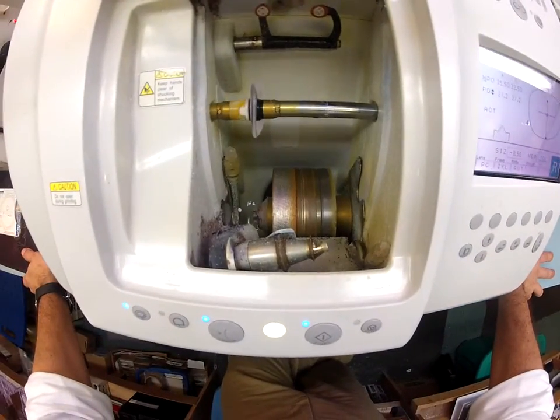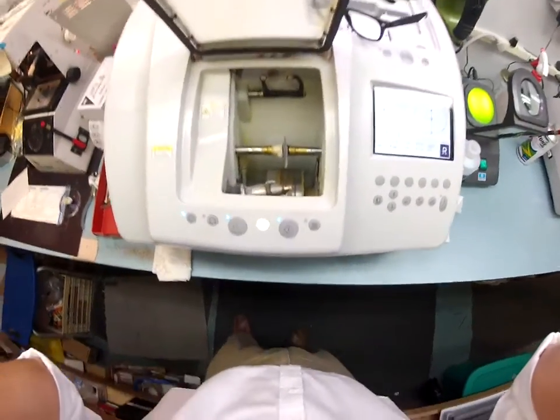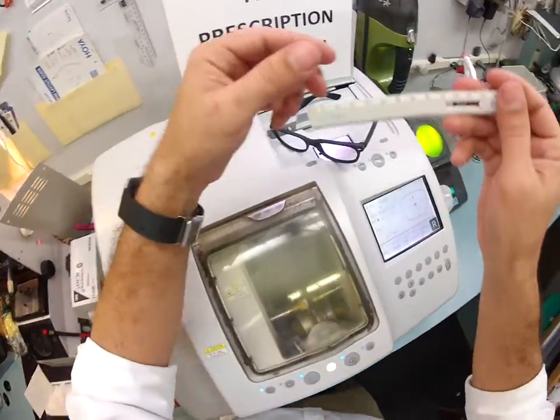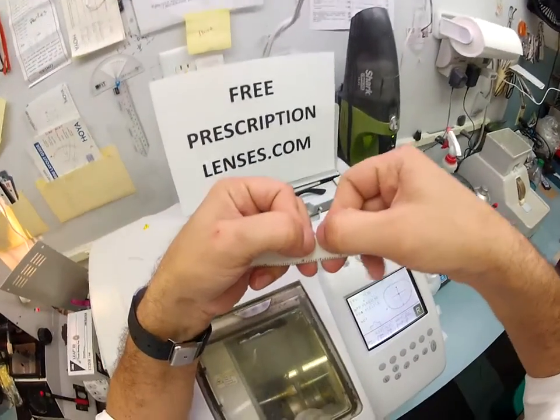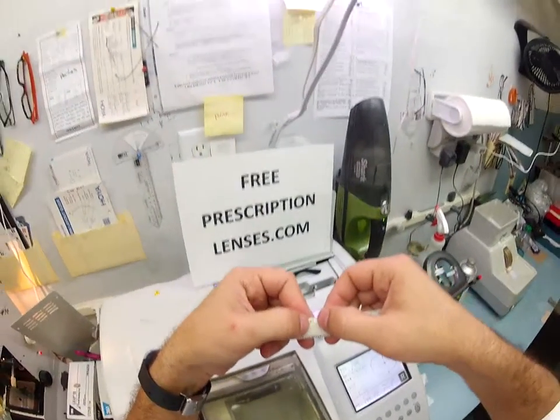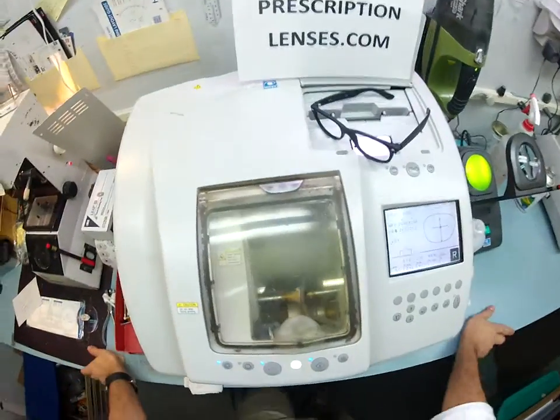I wear color 6053, which is the blue crystal. Instead of going to the cutting wheel, it's just going to go to the bevel wheel now and take a quarter millimeter off the circumference of your lens. The golden rule: you can always cut more off a lens, you can never add it back on. So I start large and work my way down. A millimeter — there are 25.4 of them in one inch. I'm taking a quarter of the distance between my thumbnails off around the circumference of your lens, then pop it back in to see if it fits.